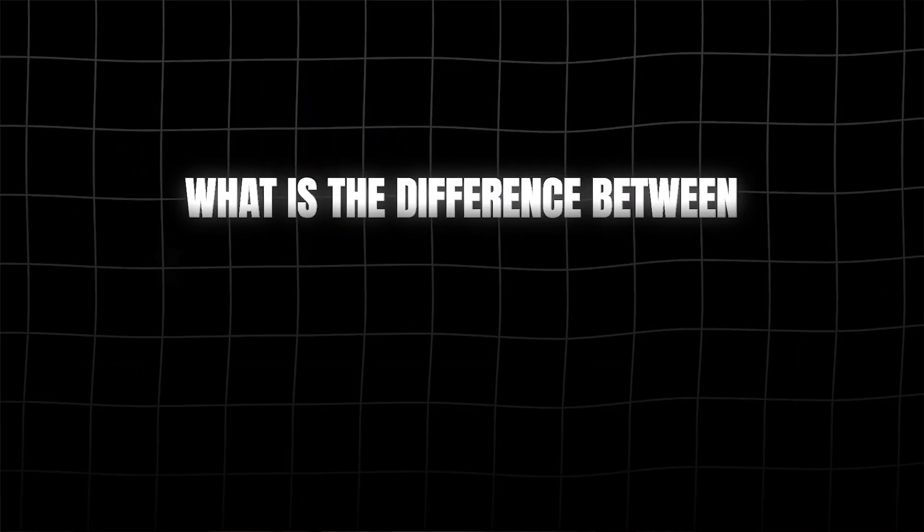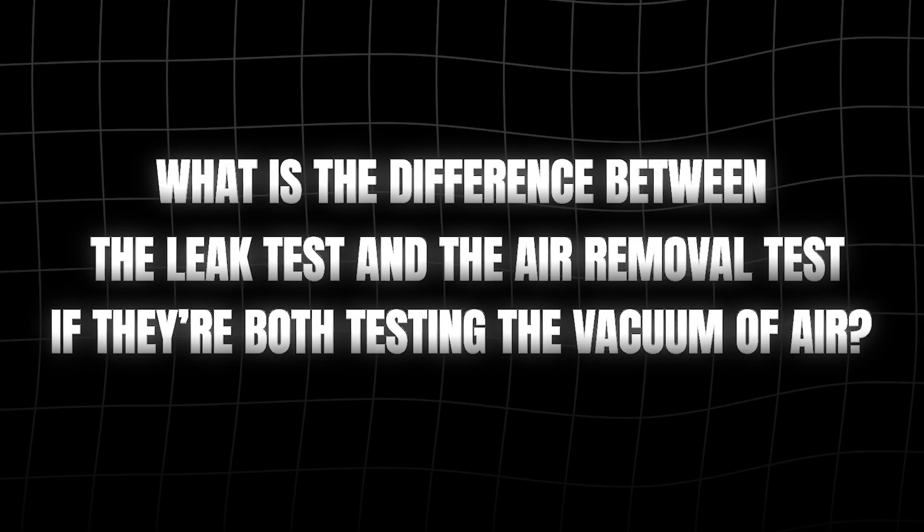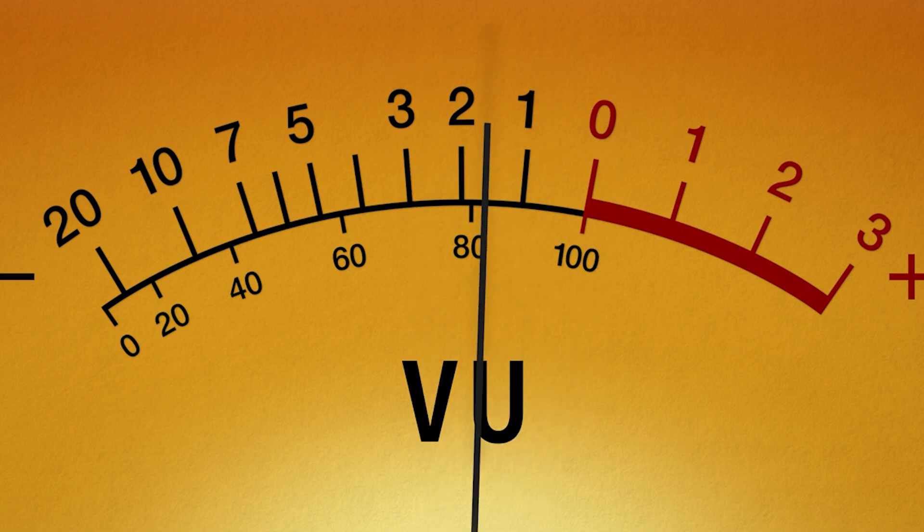Before we move on, there's one thing I want to point out. I have heard techs ask: what is the difference between the leak test and the air removal test if they are both testing the vacuum of air? This is a great question. The leak test is specifically designed to create a vacuum and hold it for a length of time — typically around 15 minutes — where it simply tests for changes in pressure, and that is all. The air removal test, on the other hand, performs a sterilization cycle in which not only does it vacuum air out, but it also then introduces steam at pressure. If the vacuum was unsuccessful in removing all the air, then the steam cannot penetrate the depths of the air removal test. You might think you can simply combine these tests into one, but you can't.